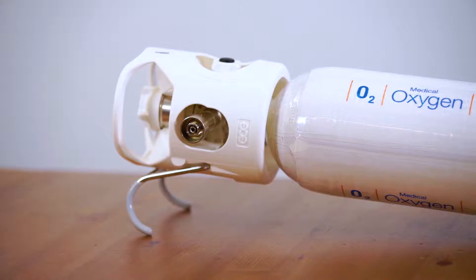In this program we will outline six simple steps in the effective use of the Coregas IVR, which will allow you to perform your job safely and efficiently, and more importantly assist you in providing quality patient care.